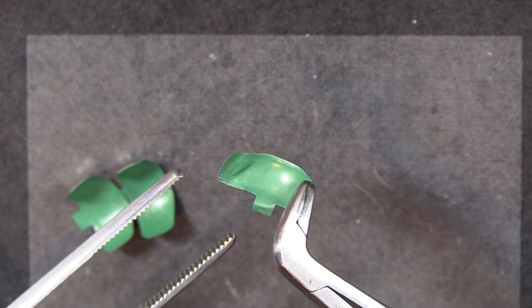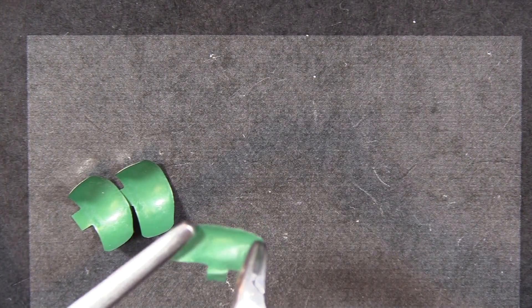Look at the teeth on this. This is a surgical tissue forceps. Same thing. I can just pull it right out because the grip is so strong with these.